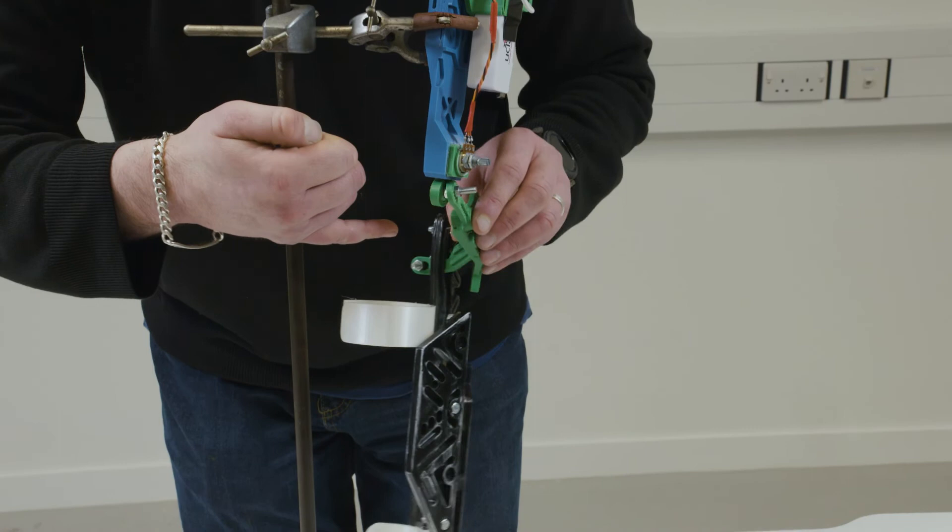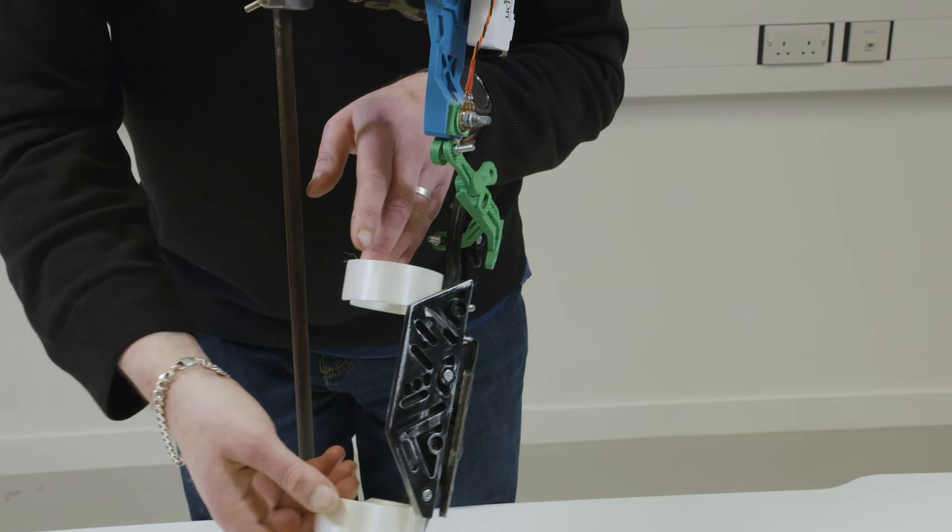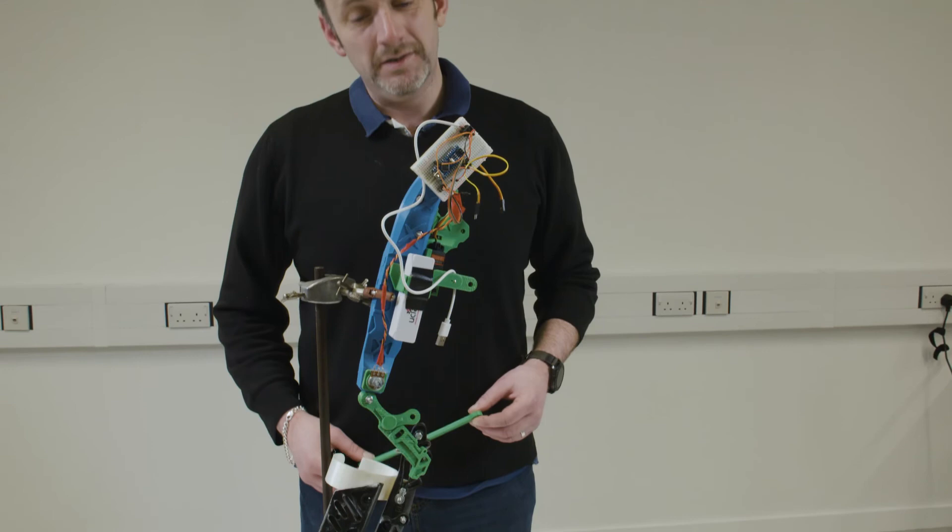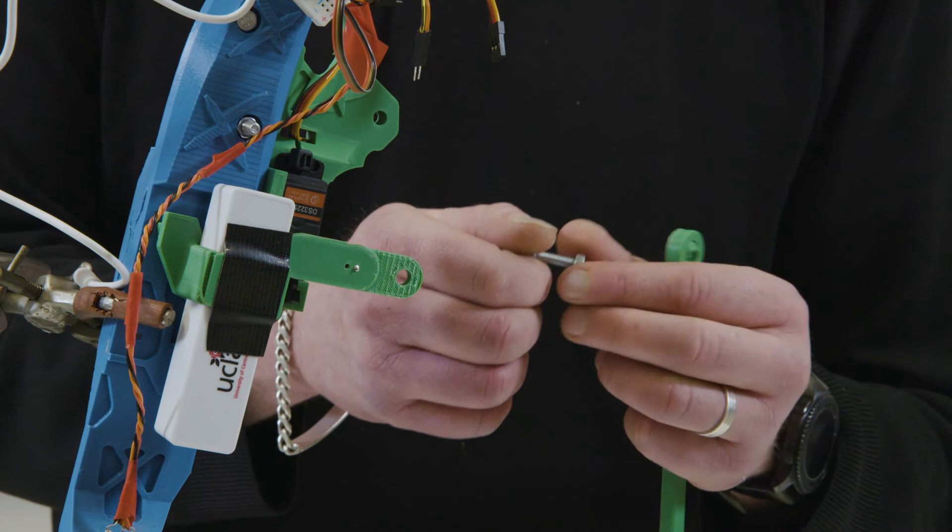But this means if I manually pull this it allows for something as primitive as my arm, my elbow, to always maintain its position. The arm exoskeleton is now almost complete. We've now got this, the rod end itself. Taking the same inspiration, so the nut and bolt, I just want to give it a little bit of space. And it's because when this moves it's going to be moving around.